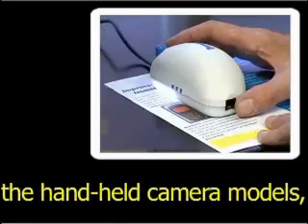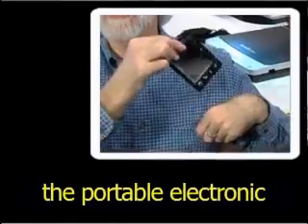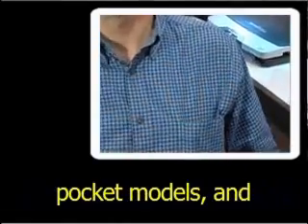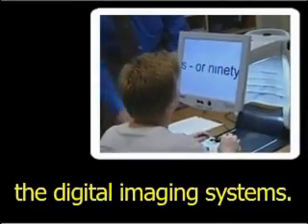In this segment we'll look at the handheld camera models, the portable electronic pocket models, and the digital imaging systems.